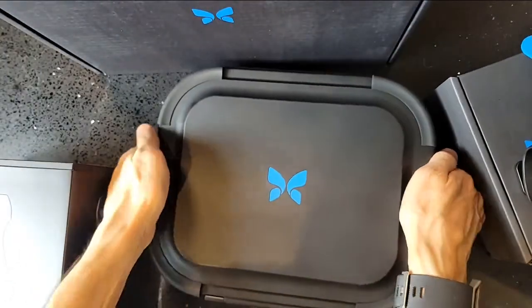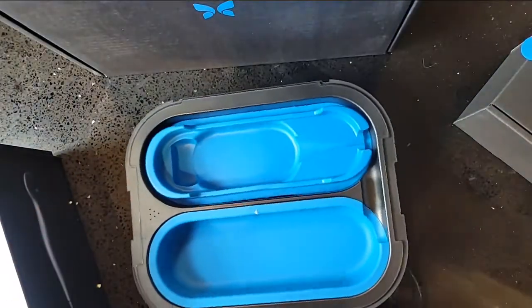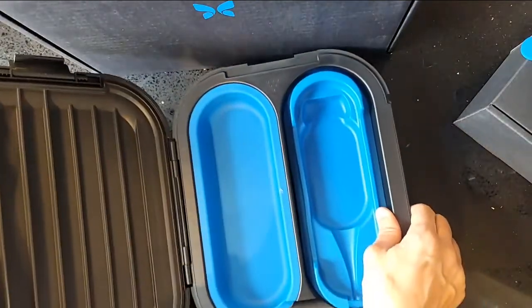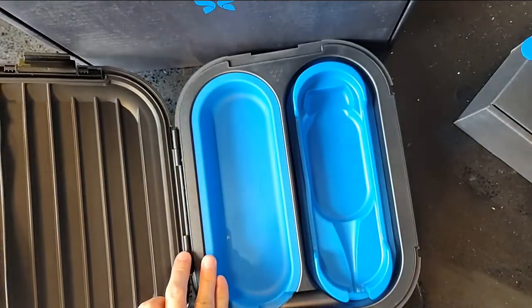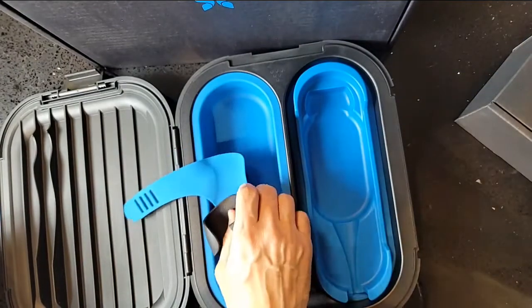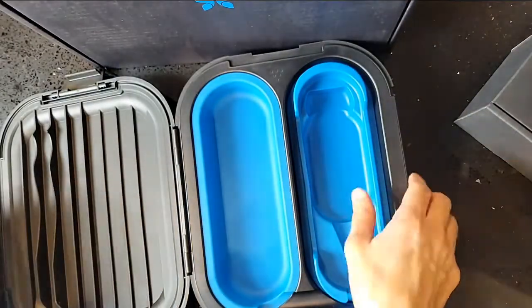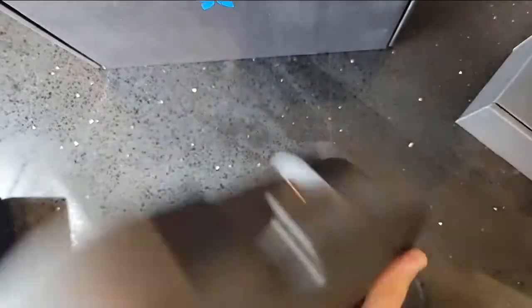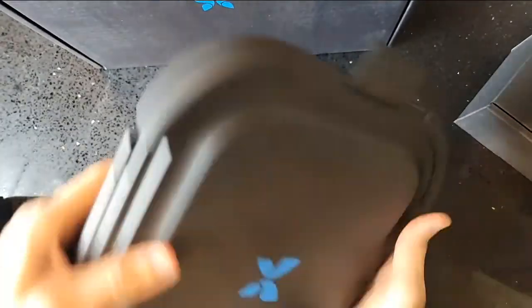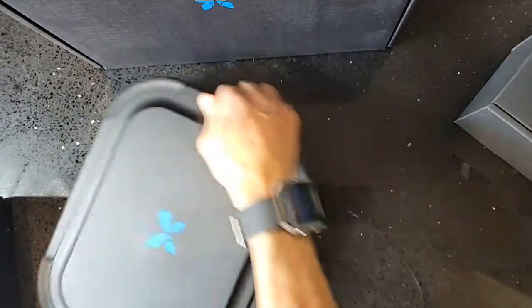There are locks on the side — kind of standard locking mechanisms. Nice and firm on the first try. Inside there's a sleek design accommodating both the probe and the wiring. I'm not sure it'll fit with the actual holster handle, so that may have to be separate and just clip onto your side. But overall it's a sleek, stylish, firm and sturdy design — great look from Butterfly Network. So we've looked at the holster and the case.